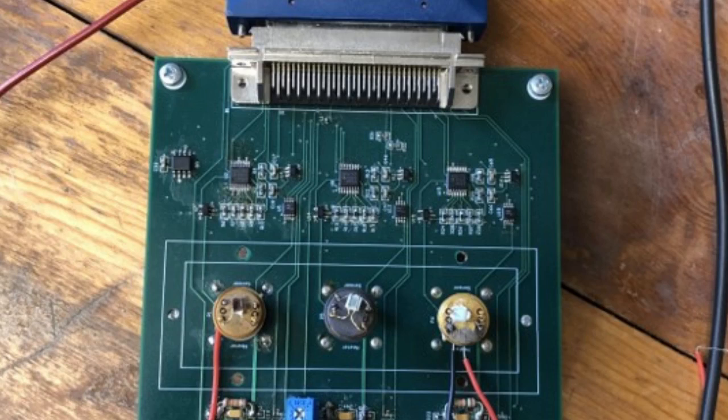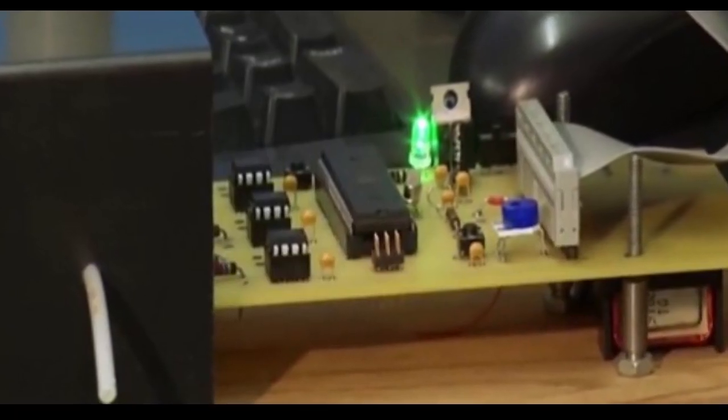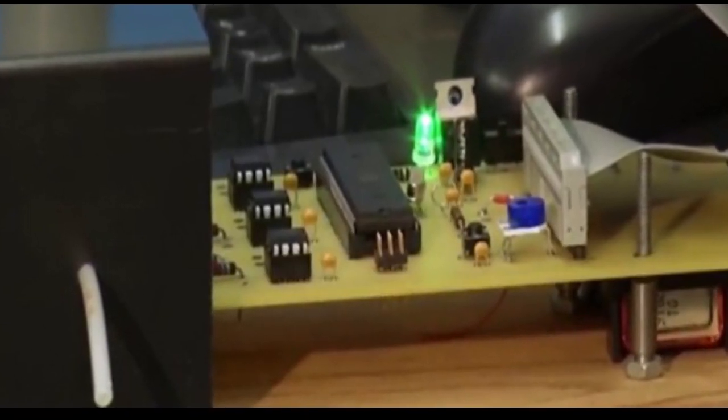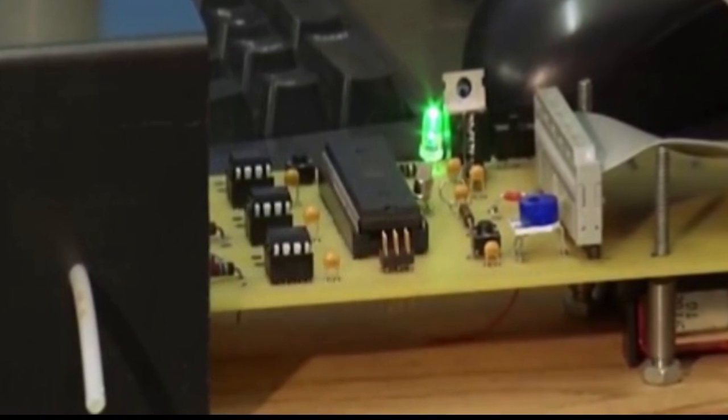The COVID-19 breathalyzer involves advances in nanomaterials for detecting specific breath gases at the concentrations of interest for making a diagnosis. The breath analyzer gives results rapidly, with 15 seconds response time.